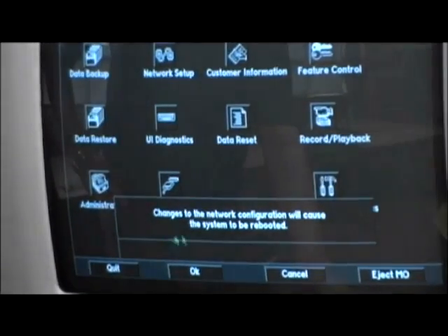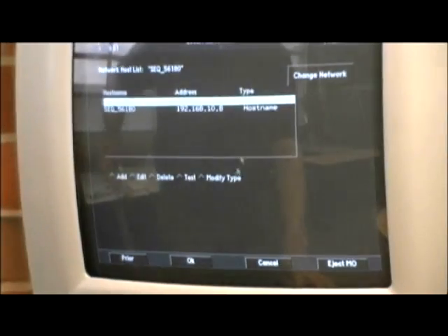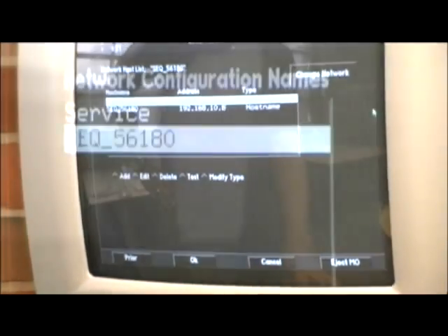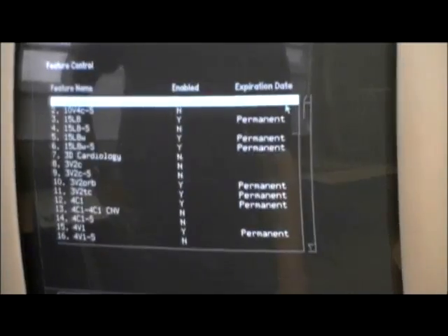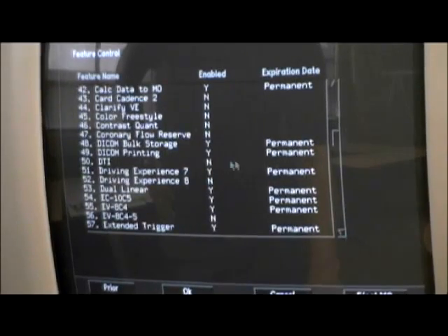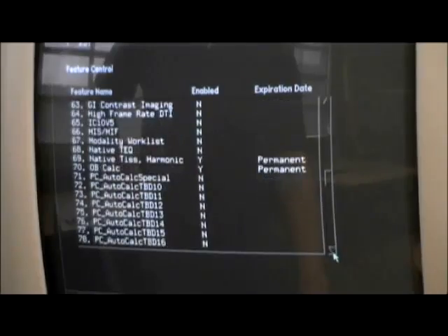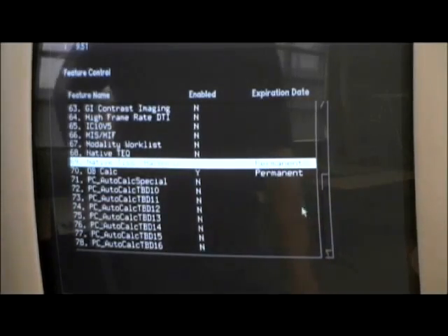This will prompt the system to be rebooted. Press OK. Your system will then read the network data. Go back to the SUI screen if your preferred network is being used. At this point, check your feature control to ensure the features were reloaded properly. It is useful to rely on a sonographer at this point because they know which features are most often used.